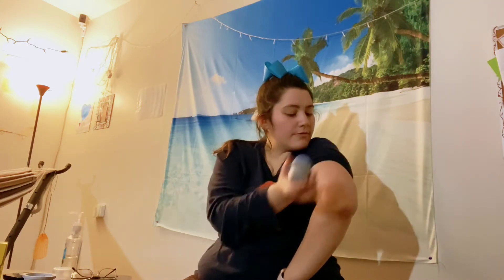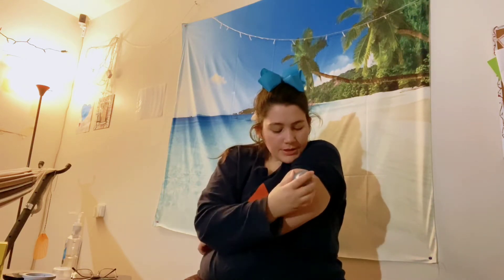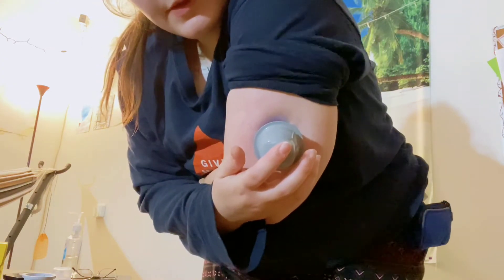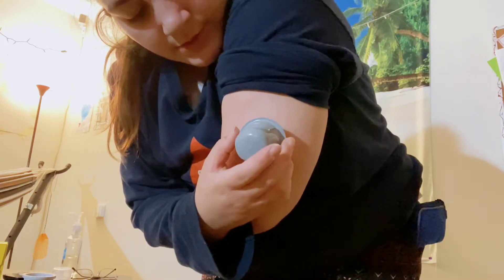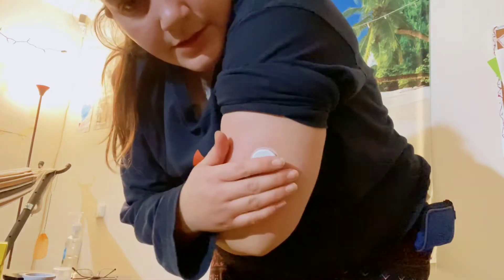You can see the needle in there a little bit. My arm is dry and I've used alcohol — I'm not using any adhesive things because that can alter the accuracy. We're going to press it into your skin: one, two, three. It shoots the needle in, takes the needle out, and leaves that little wire in place. Wiggle it off, pull it off, and stick it down.